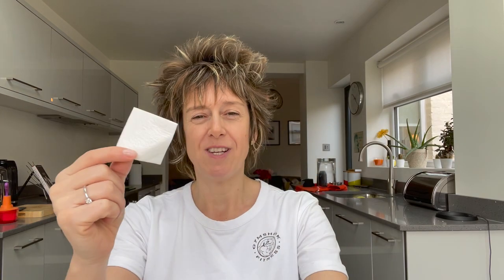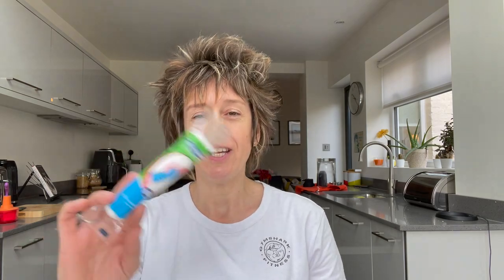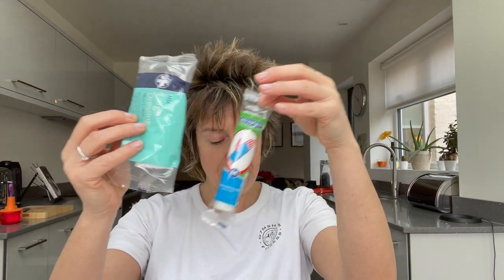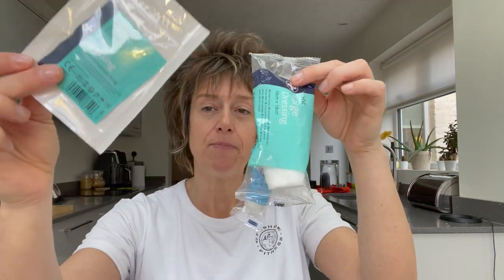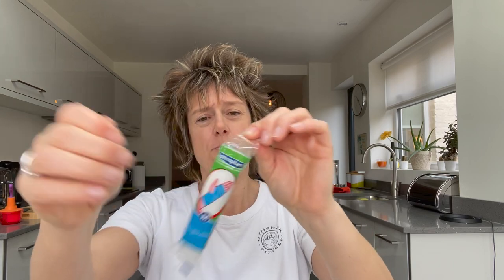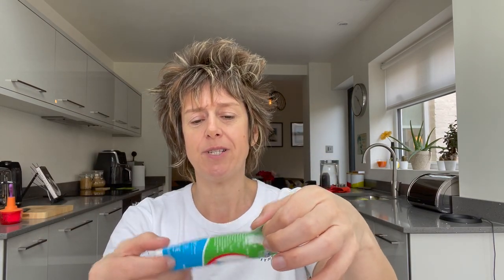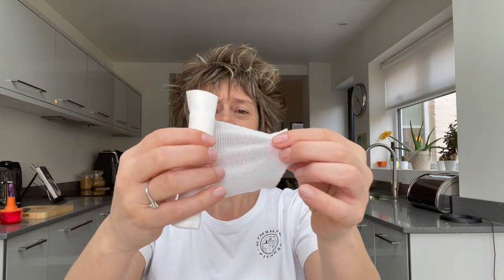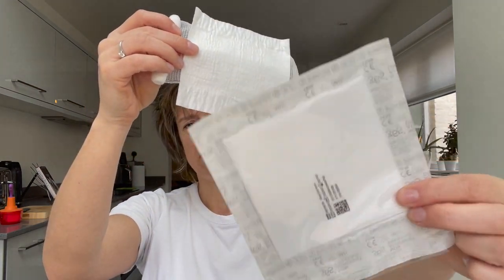That's what I mean by a bit of gauze, and we get them in different sizes. Or you might just get one that's purpose-built — so this is a medium-sized one, and we have them in large as well. I've also got a finger dressing one here. Let's have a look at this medium one — always check the date to make sure it's still in date. When you unroll it you'll find there's a bit of gauze, exactly the same as the separate version.